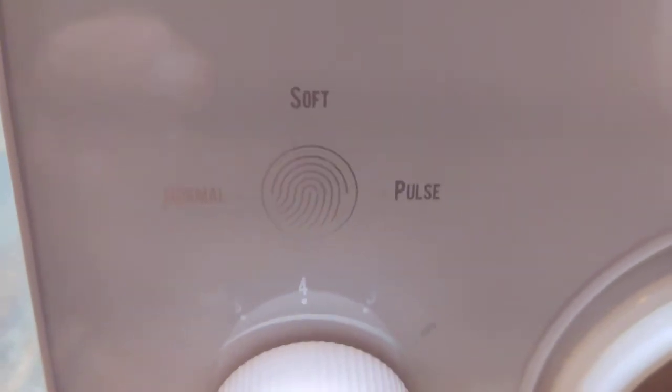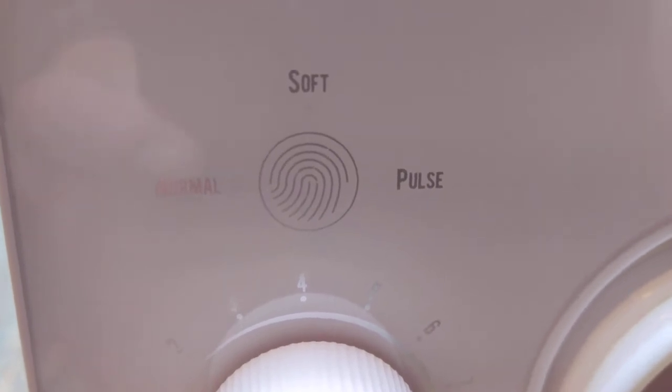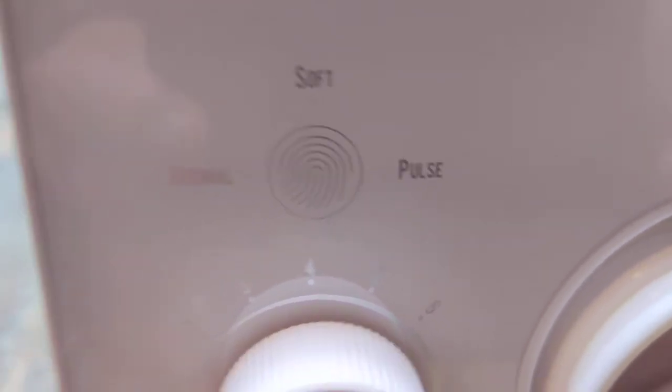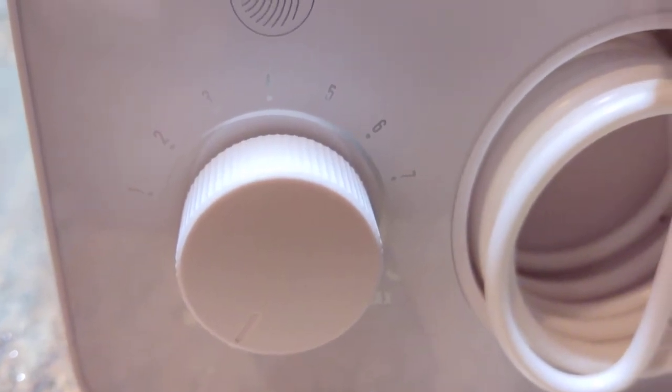That's your mode button, obviously sensor touch. You've got normal, soft or pulse, and then you've got the dial to turn it up or down whatever suits you.